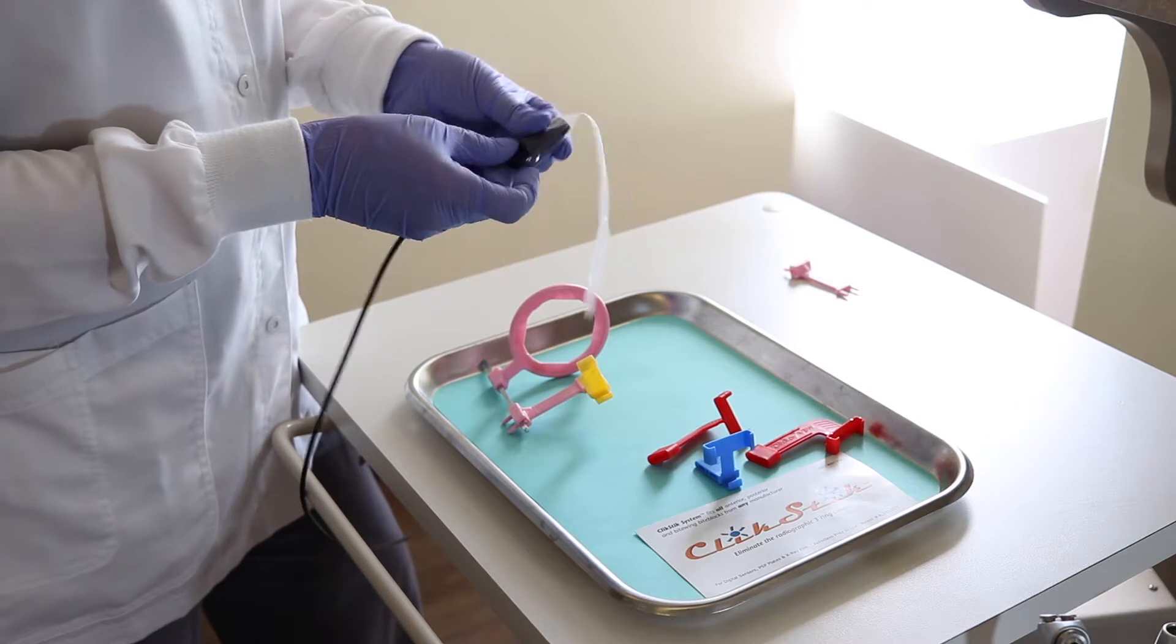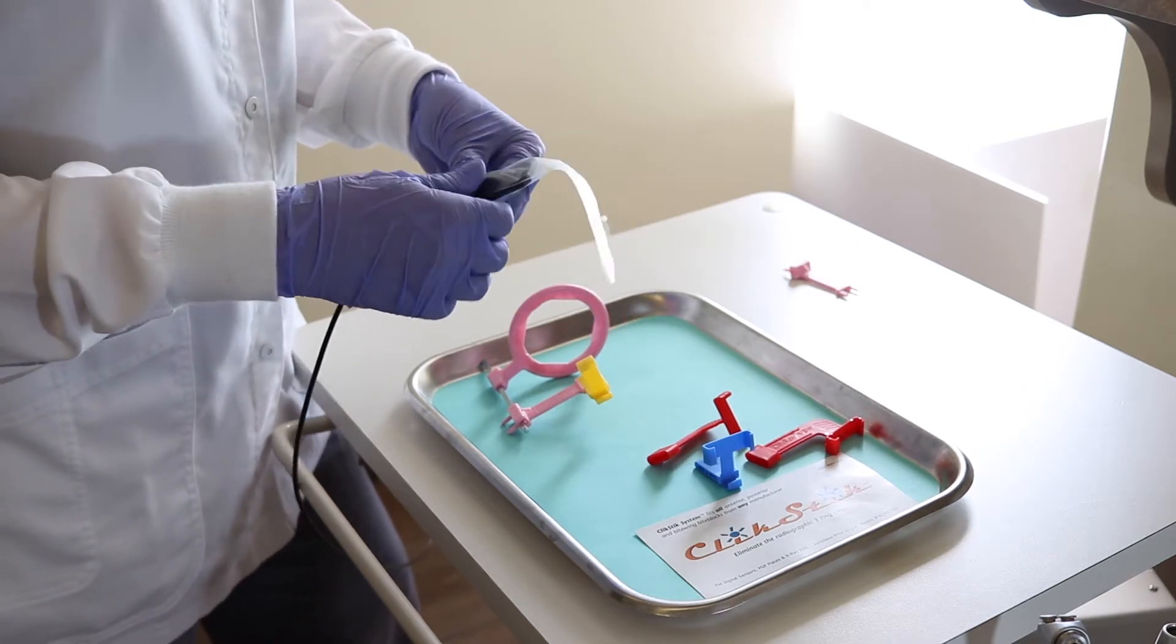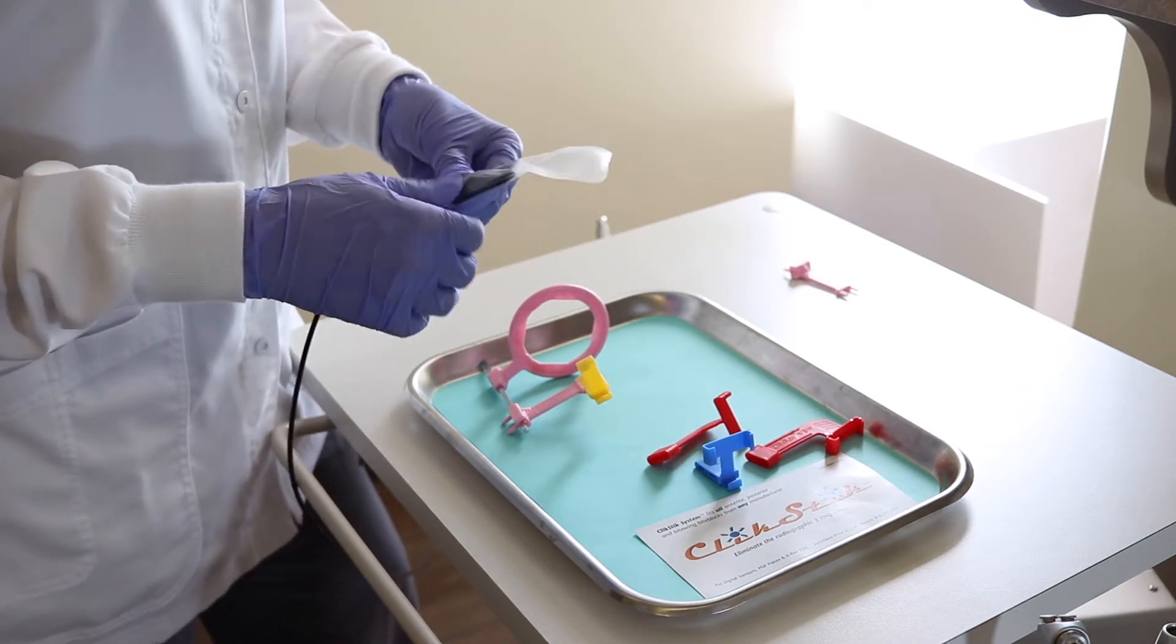We're going to take our Dentimax Dream Sensor. You guys will find out what a dream the sensor is when you finally get it in use in your office. They take amazing x-rays.